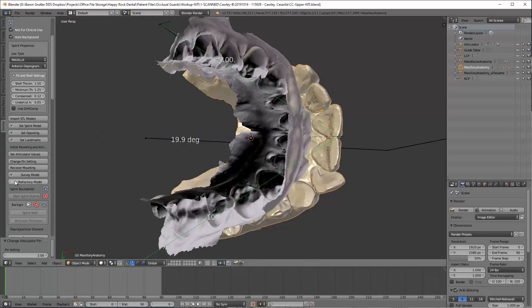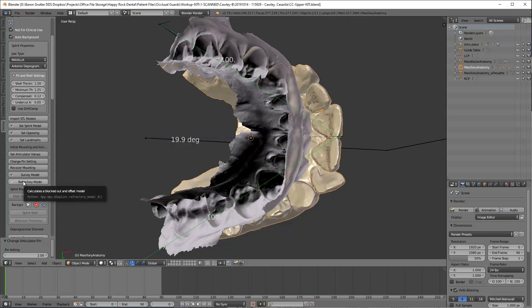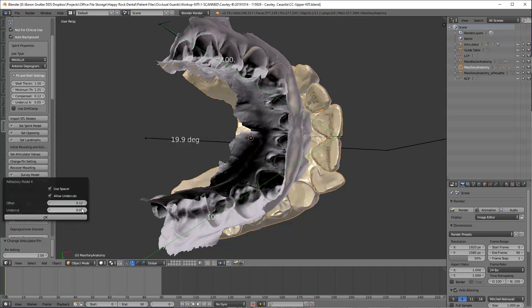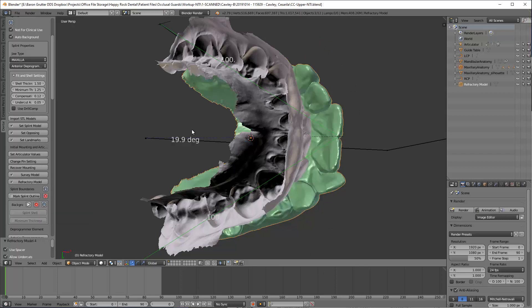And so now I'm going to hit save to continue. The software forces you to save, which is good because otherwise if something happens, you want to make sure that you can get back to it. And now I'm going to click this refractory model button here. This is determining the offset, how much passivity. I'm going to leave it at 0.12 because that's what I've been doing now. It's basically creating a shell that is just that much larger than this model, so that when it makes the actual appliance it can go there.